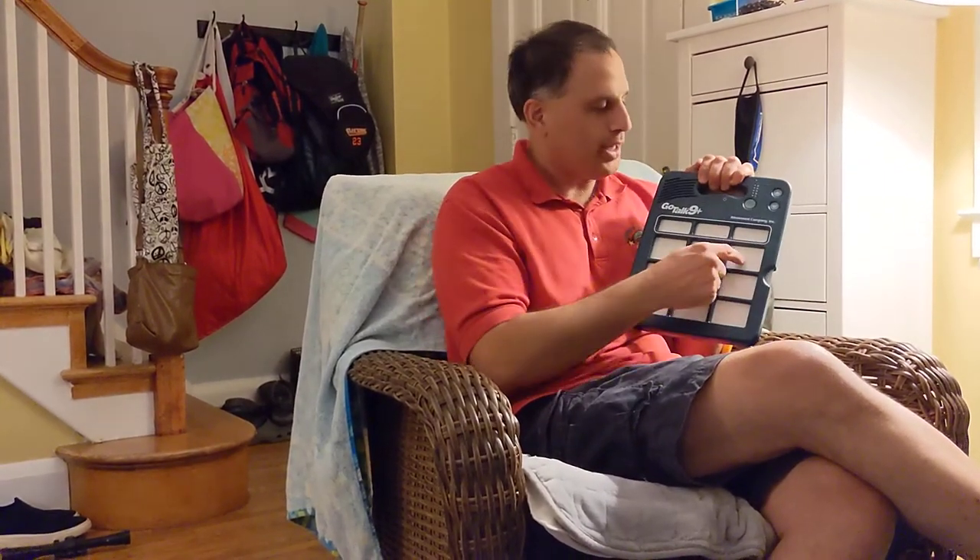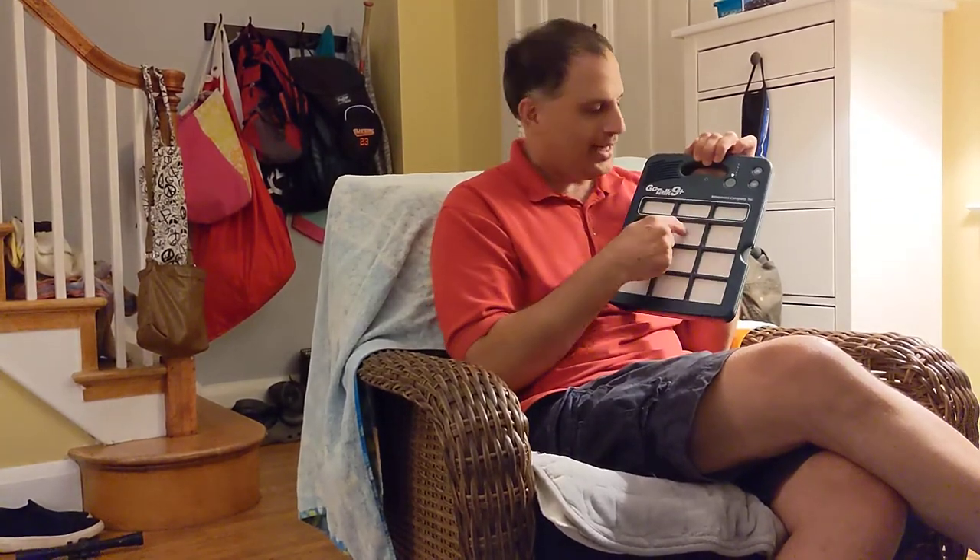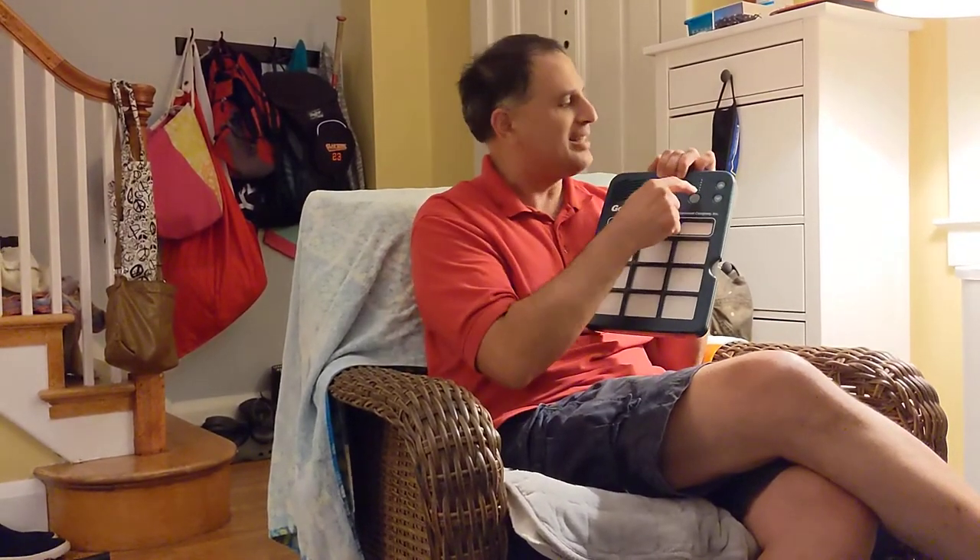So now I've locked both the recording-over possibility and the level button — it's all locked up again. My new words are still there, but now that it's locked, if I just press the record button, I can't get the blinking light anymore — I can't record again. It's locked in there. And if I press this level button, that weird level feature is not going to do anything. It's not going to let me change that either. It's just going to keep it locked down like this.